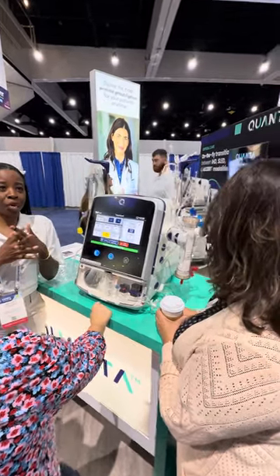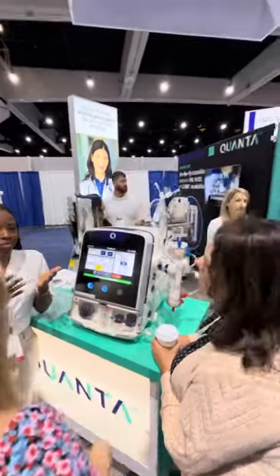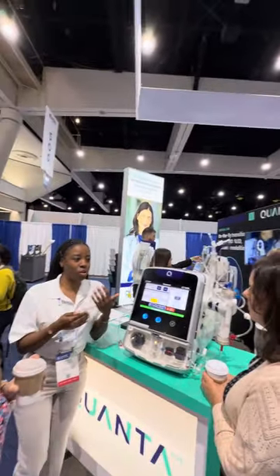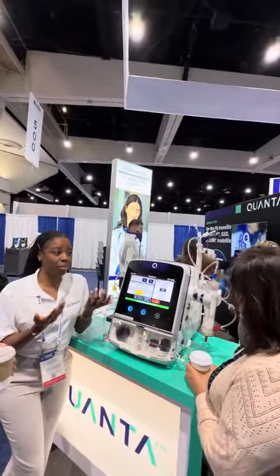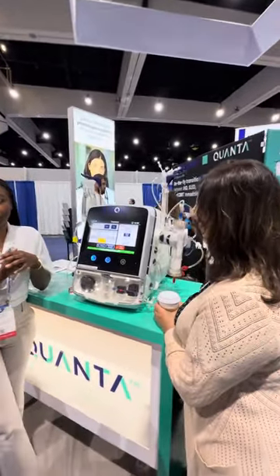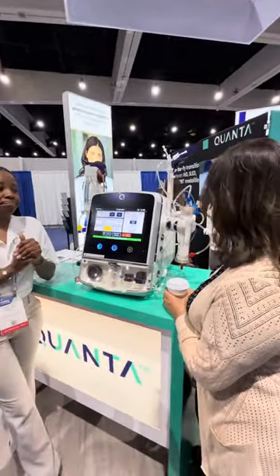Even when we go to different hospitals and they have to change the order set, it's very similar — the order set interface is super similar. Yeah, that looks really nice.